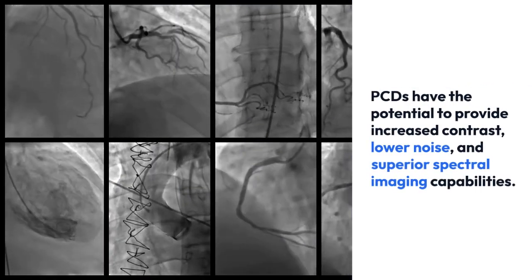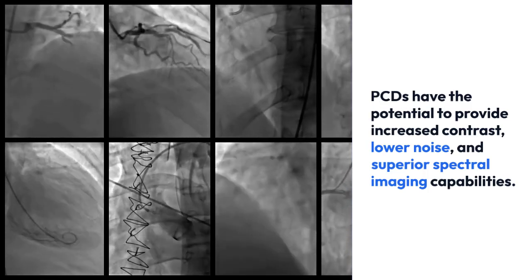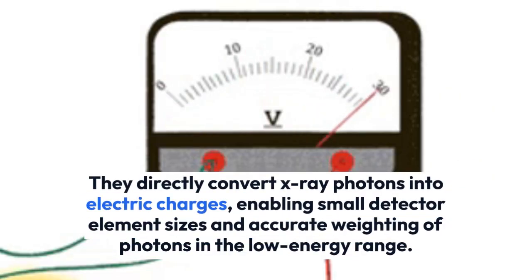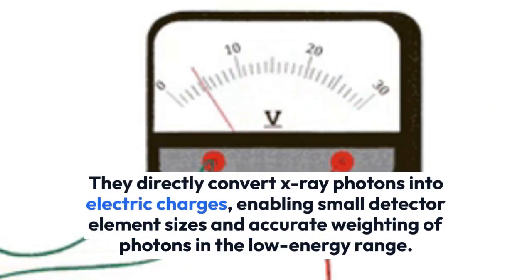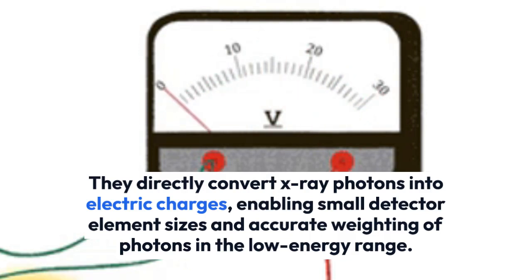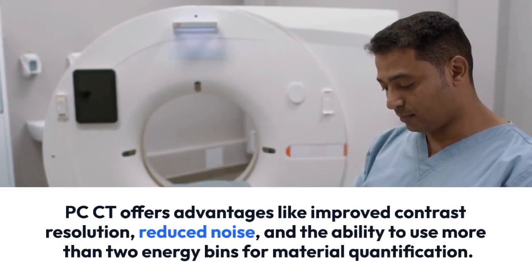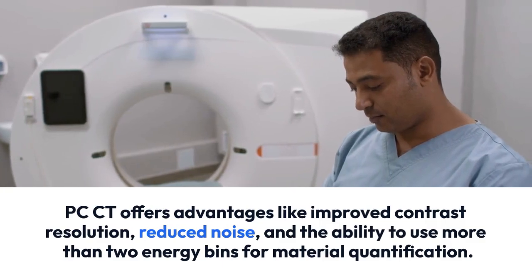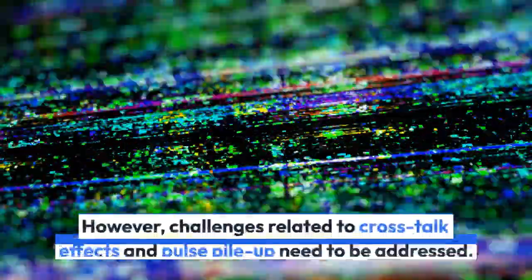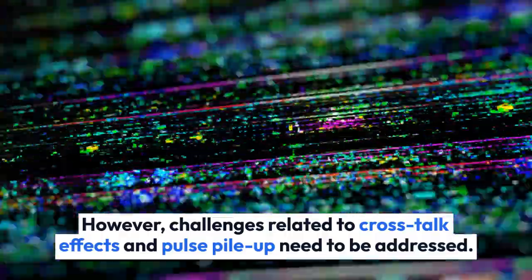Photon Counting CT detectors have the potential to provide increased contrast, lower noise, and superior spectral imaging capabilities. They directly convert x-ray photons into electric charges, enabling smaller detector element sizes and accurate weighting of photons in the low energy range. Photon Counting CT offers advantages like improved contrast resolution, reduced noise, and the ability to use more than two energy bins for material quantification. However, challenges related to crosstalk effects and pulse pileup need to be addressed.